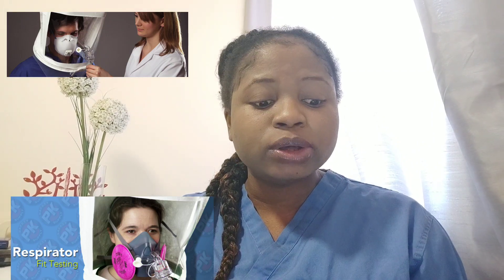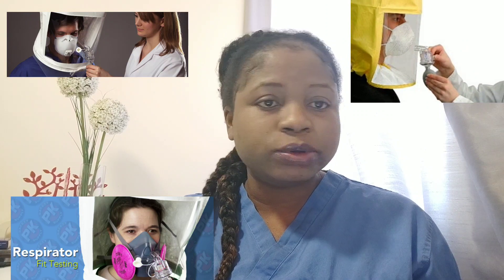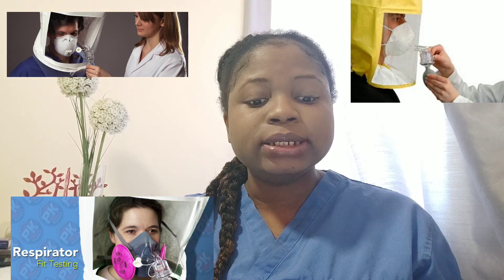Before you use the N95 respirator in the hospital, you are supposed to do a fit test — a facial fit test — to check if the N95 mask properly fits your face, because everyone has different anatomical faces. You have to be sure there are no leakages, because if it is not properly fitted, leakages can occur around the edges.